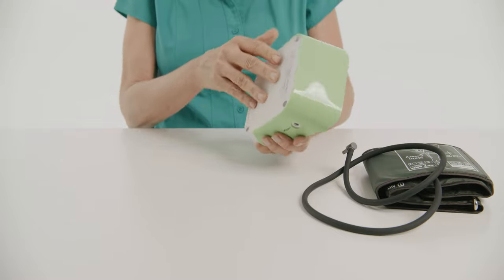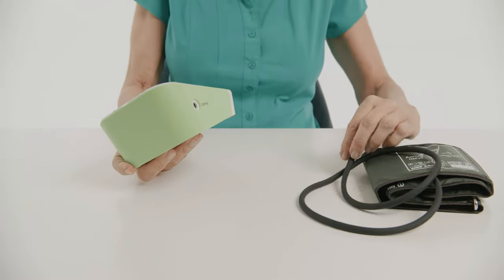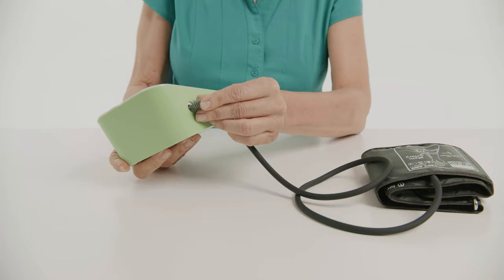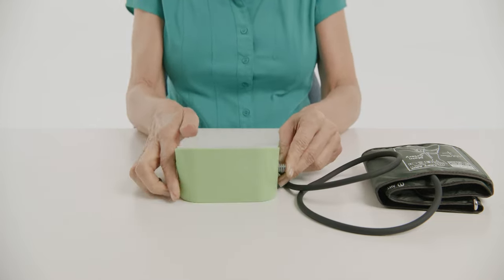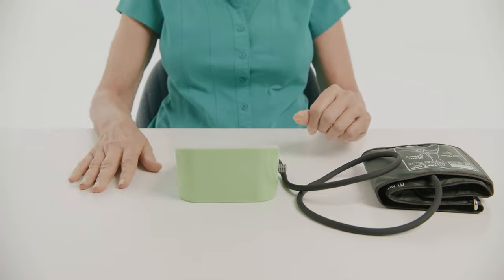Make sure you secure the tubing of the cuff into the device. That is it. Your device is set up and ready to go.